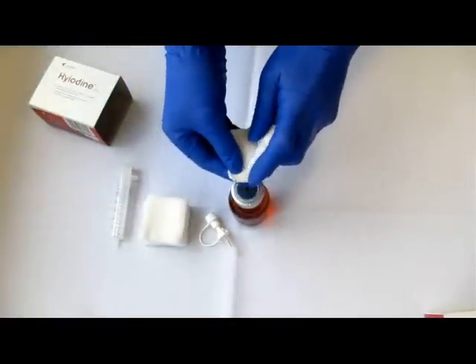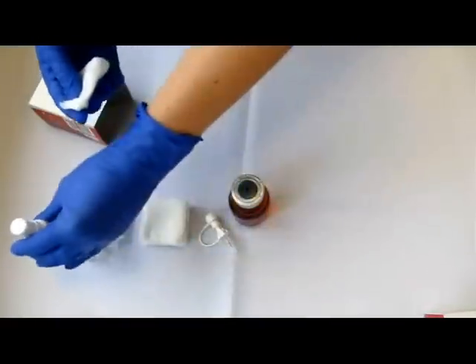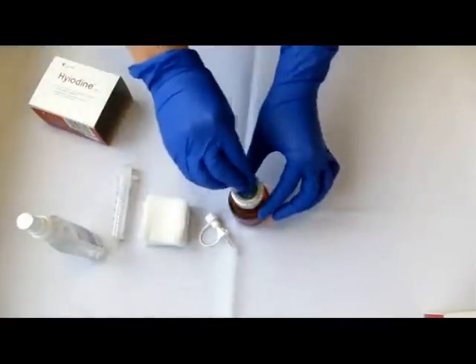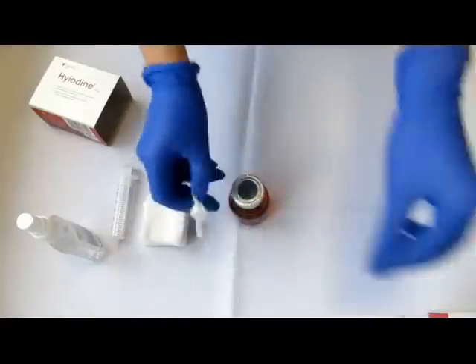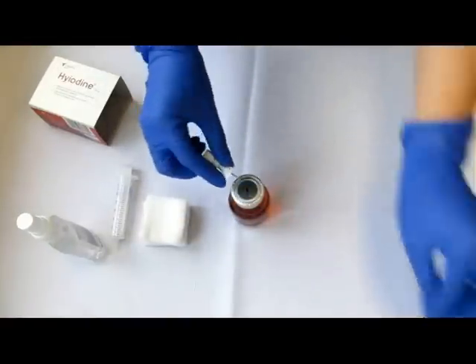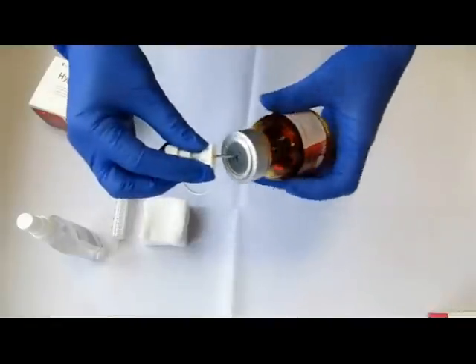Clean the uncovered plug with a disinfecting agent. Remove the protective cap from the spike and stab it into the rubber plug.